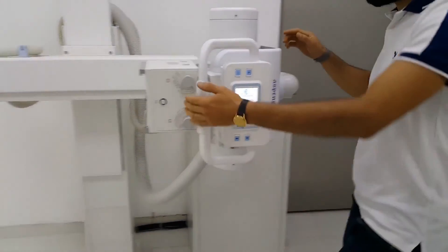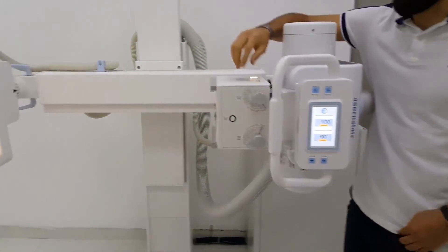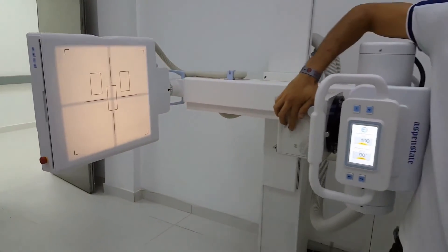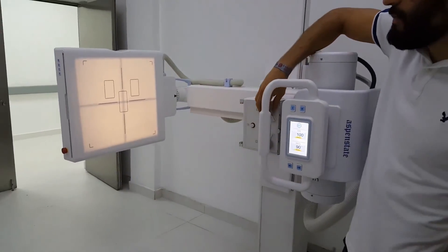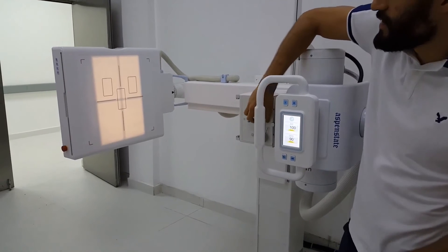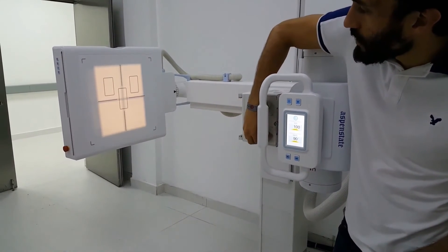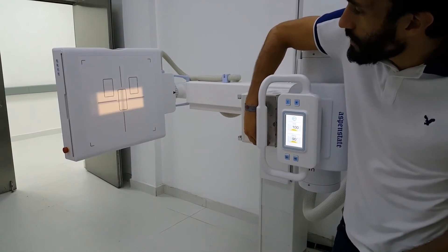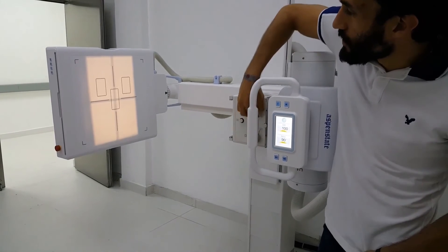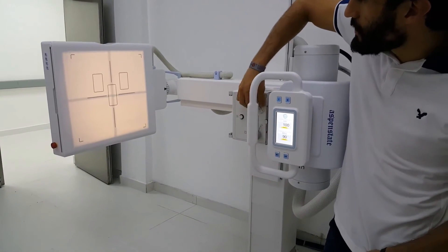You also have the collimator here. This is the collimation — you can light up the collimator. It is a mechanical one, so you can modify the vertical amplitude and also the horizontal amplitude.